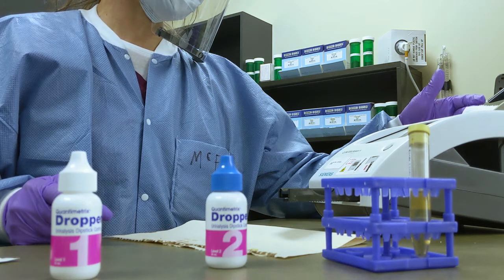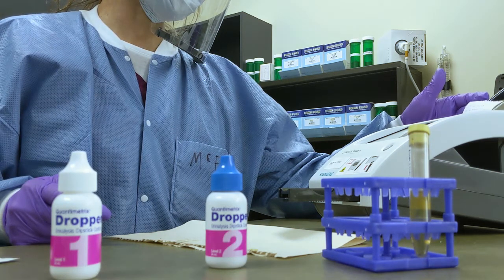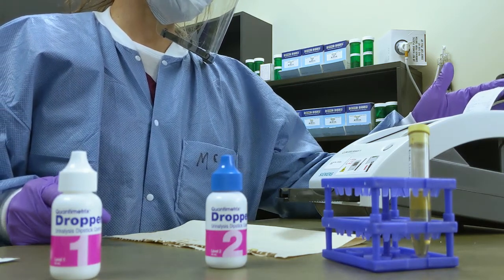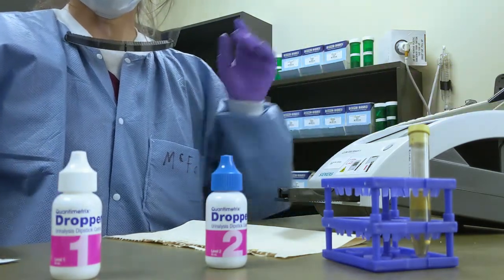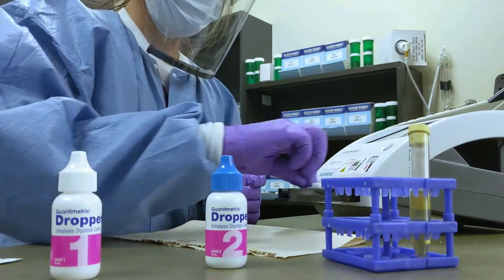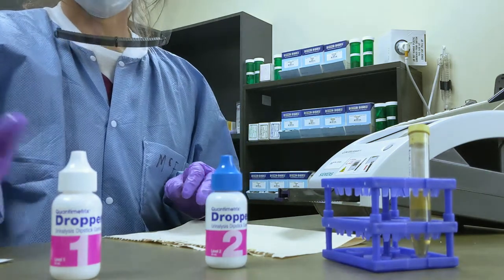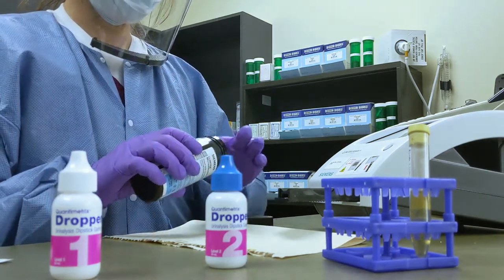So she's printing the data. And it knew that it was microalbumin 2 — tells us the date, time, who did the test, the number of tests. And it gave us an albumin, a creatinine, and an albumin-creatinine ratio. And it interpreted it for us as normal.